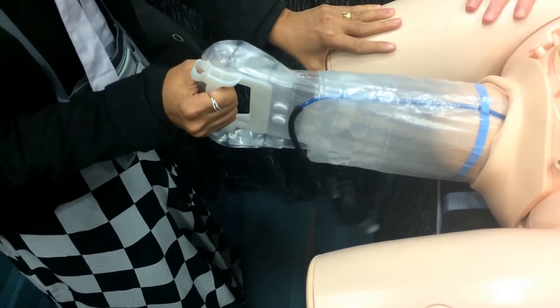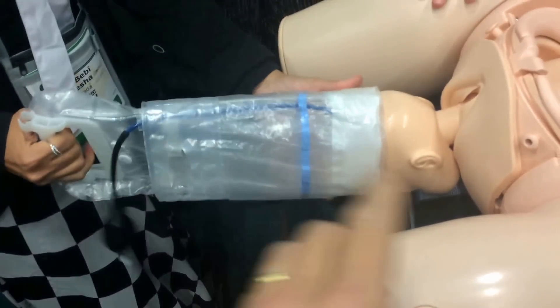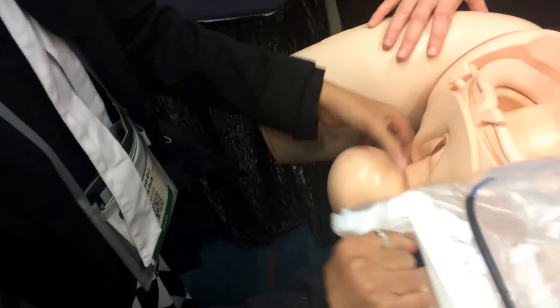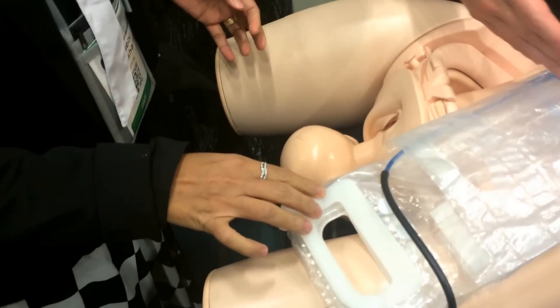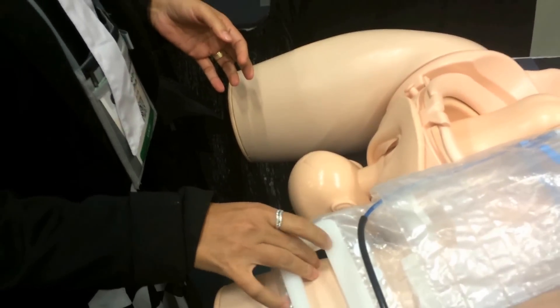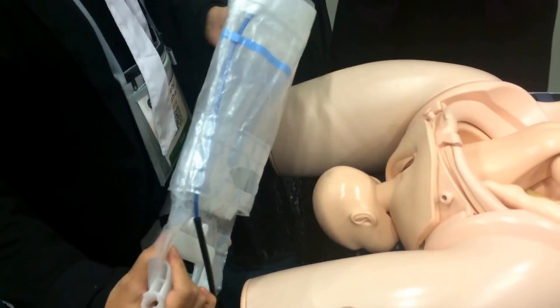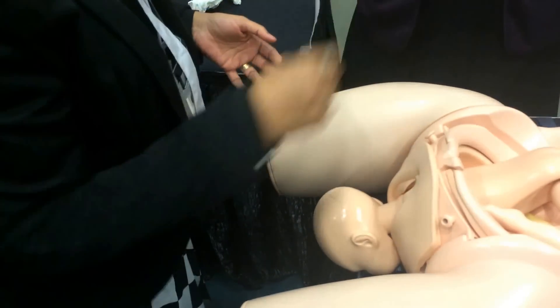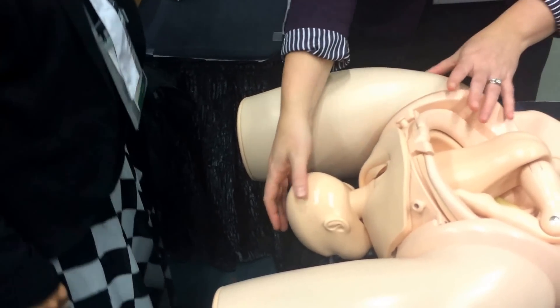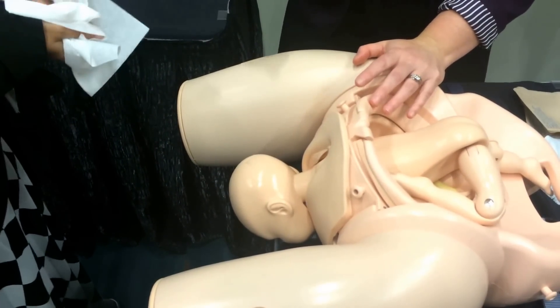That's all — now pull the rest of the way. Pull the rest because the air is out. The reason you let the air out when you see the line is because once you see the line, the baby's already crowning. You've done most of the work. You release the air so that there's less volume that has to come through the vagina at the very end. And then the bag comes off right in your hand.